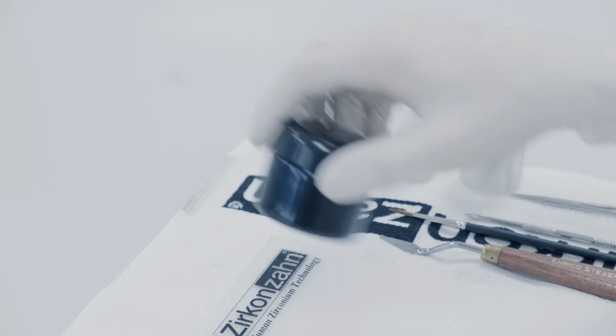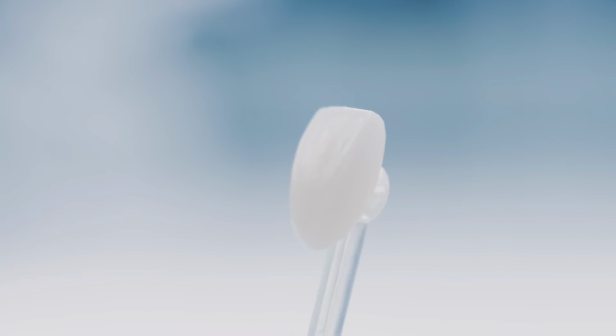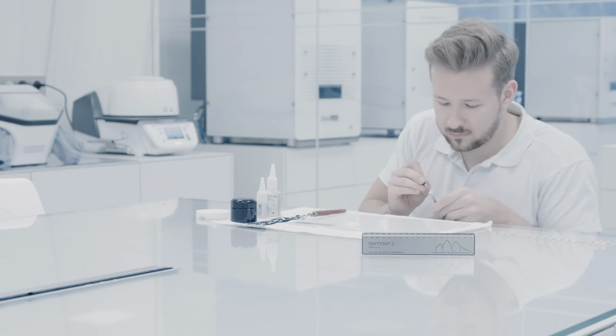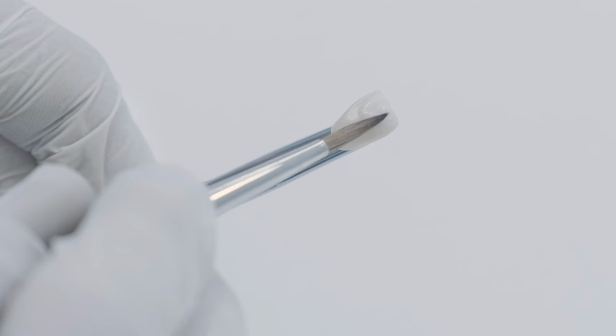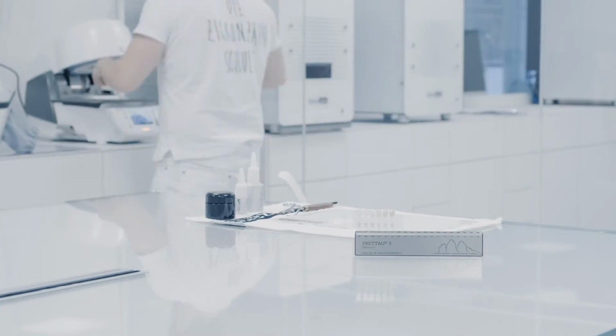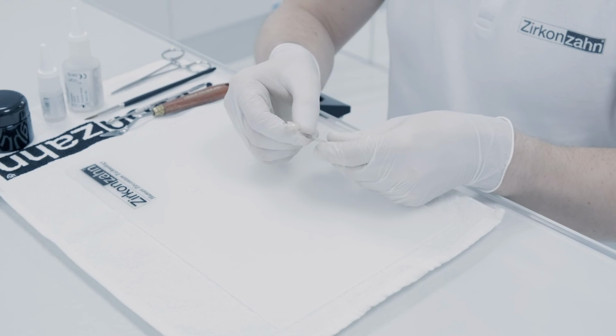Shade guides are also available for individualists. They offer minimally reduced sample teeth, which can be further characterized by the application of different incisal materials. In particular, the incisal areas can be further individualized as desired. This results in truly unique shade guides that precisely reflect individual approaches and aesthetic demands.